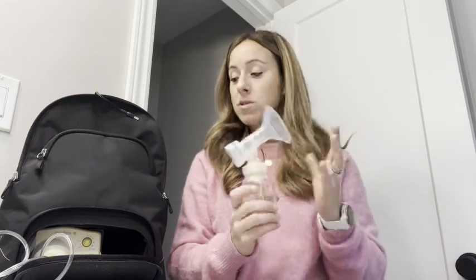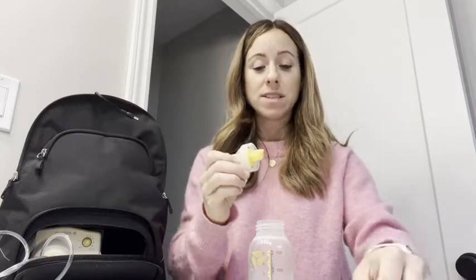Some of the things included are something every mom needs. What I love about this specific one is it cups to the breast really easily, and it also comes apart very easily to clean. I can easily just take the pieces apart and take all the little pieces.